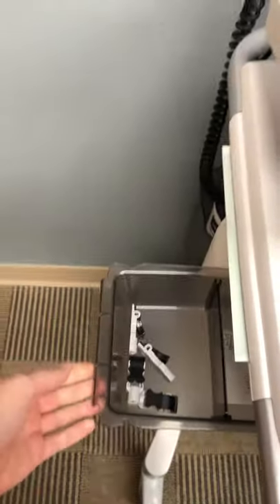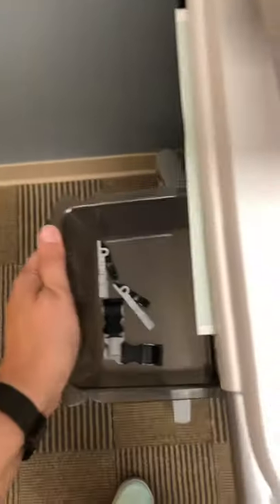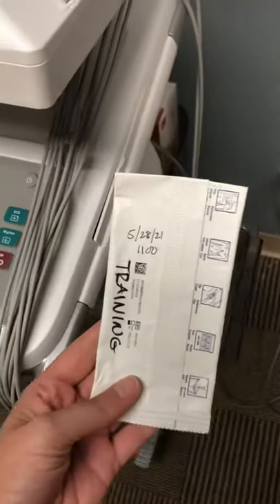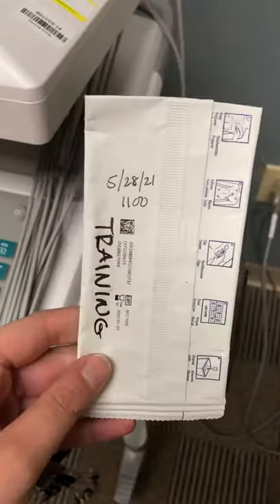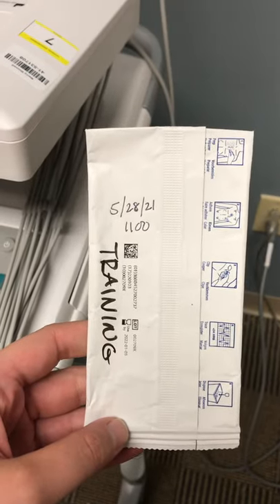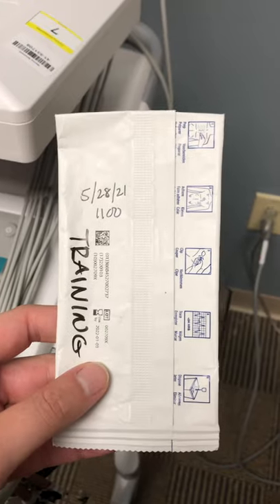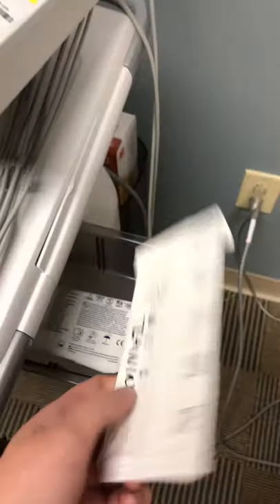The last part is a drawer underneath — it just pulls out. There are extra clips on the left side, and if you push it all the way through, there are electrodes. Any time you open up a package, it needs to be folded over at the top and then dated. These packages are only good for one month once opened. After that, they need to be thrown away and replaced, because when oxygen is exposed to the electrodes, they start to dry out and become less effective. This is also a Joint Commission requirement.